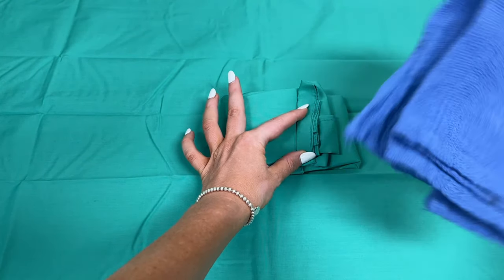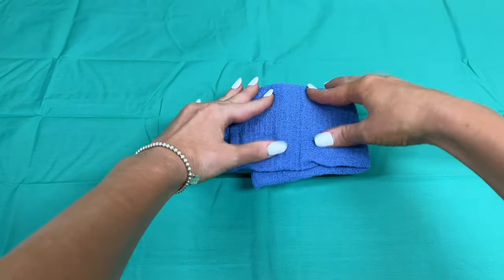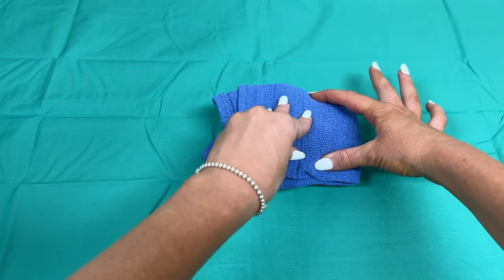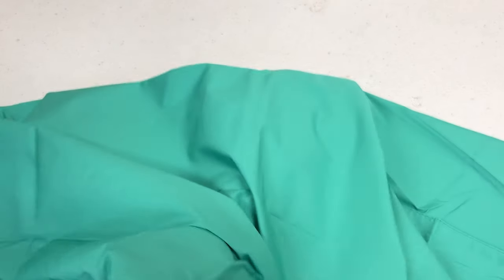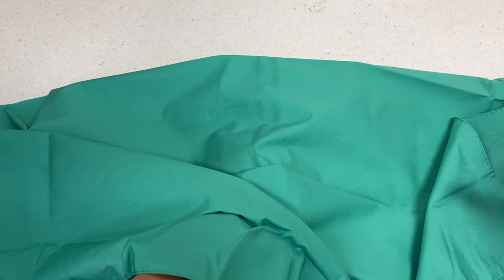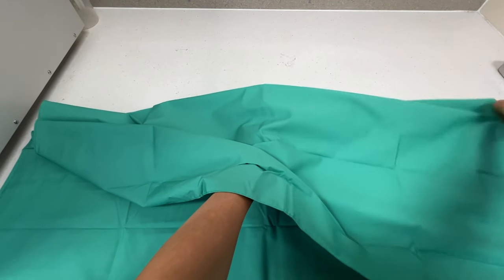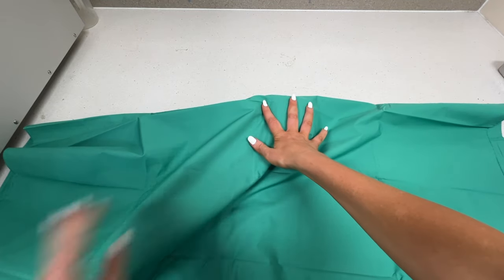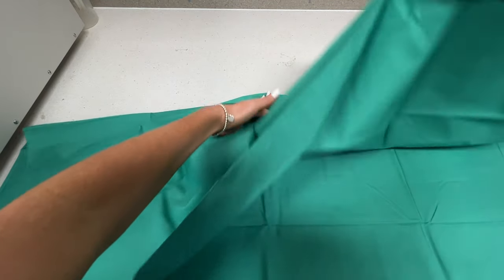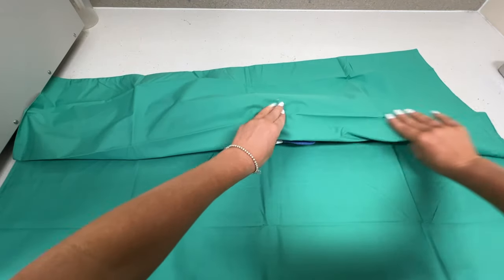When I'm getting to this section I'm going to grab a blue hand towel, make sure that it has been lint rolled, fold it down to match the size of the inner kit, and now I'm going to fold the larger drape. The hand towel in the middle section is handy because when the surgeon opens up the kit they can then grab the hand towel and dry their hands after they've surgically scrubbed. Keep your hand in the middle holding it there because sometimes the drape can go everywhere.